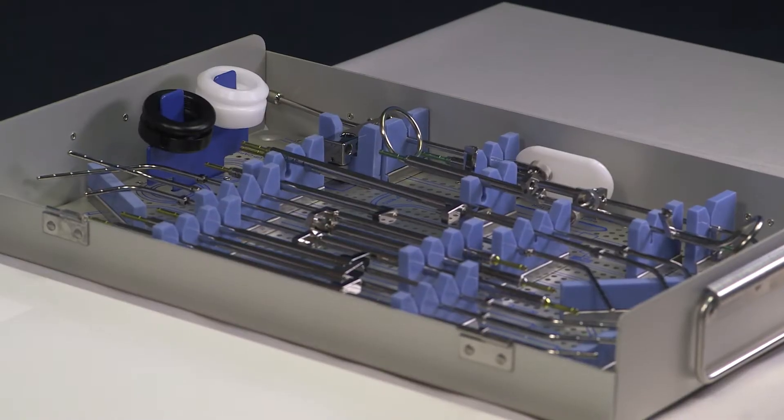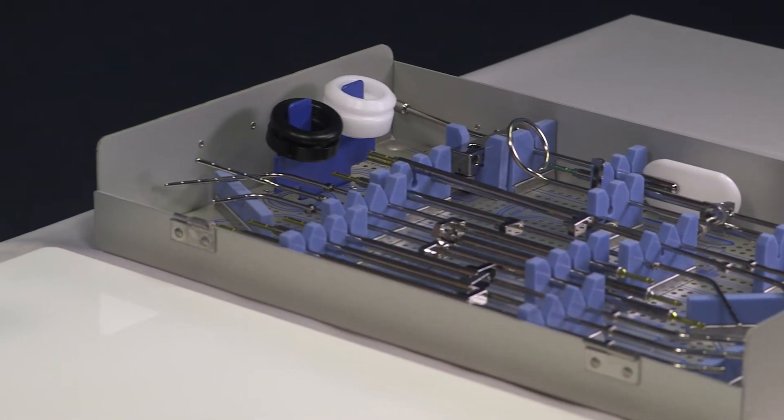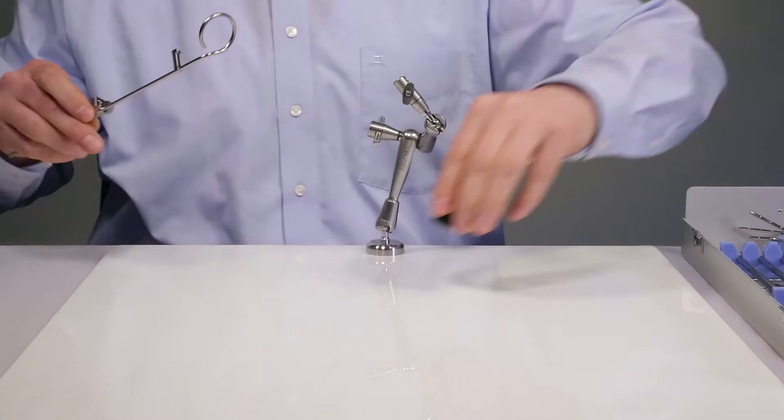So let's start with the assembly. I select the 45 degree ring and the 5 mm buildup cap.